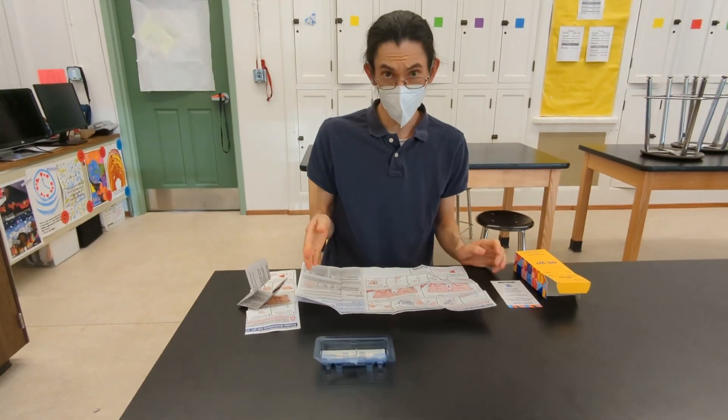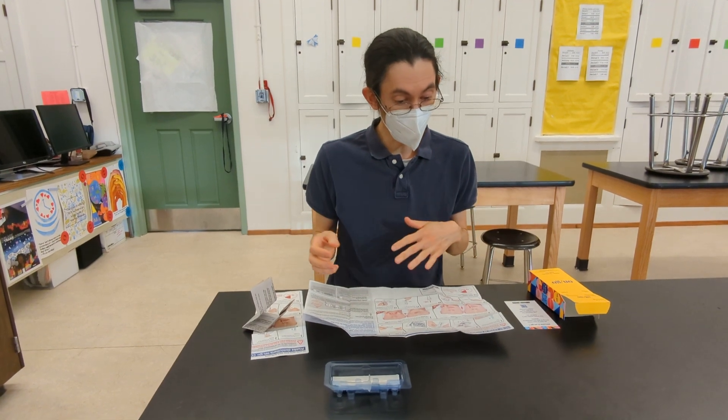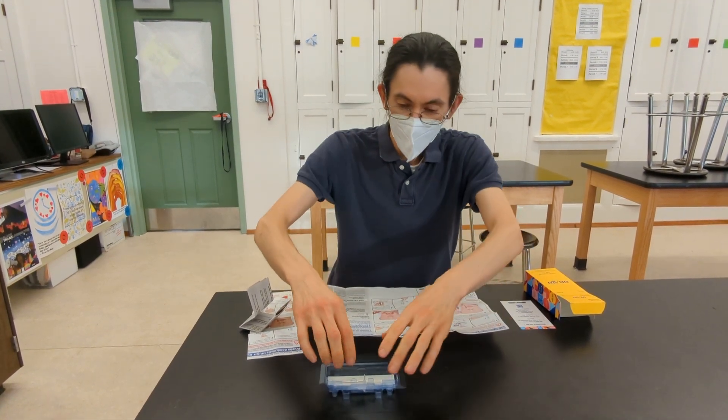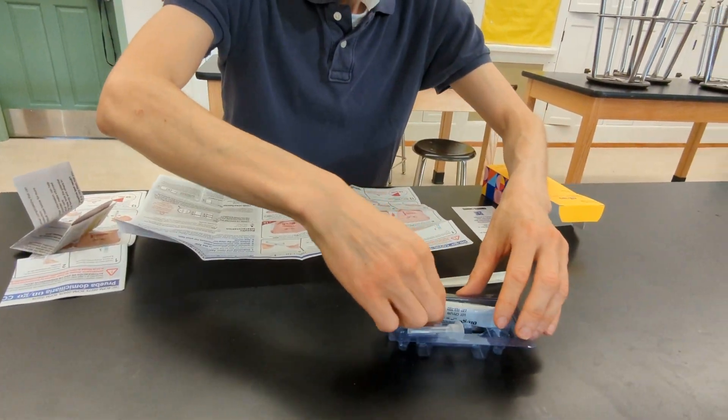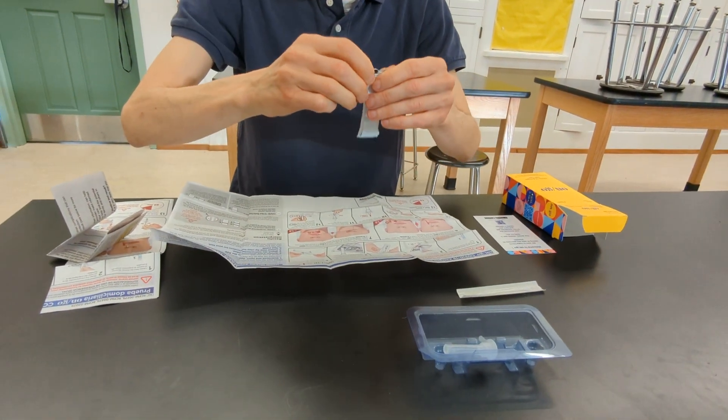Follow the steps illustrated. So once you've washed your hands, you're going to unpack and remove the test cassette and place it on a flat, clean surface.